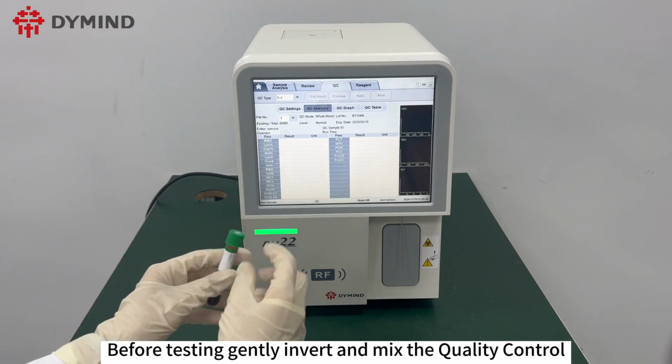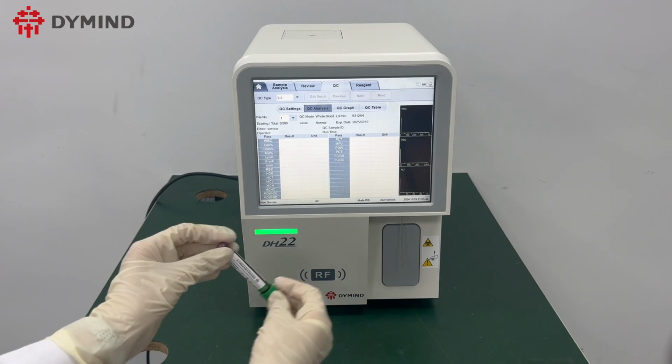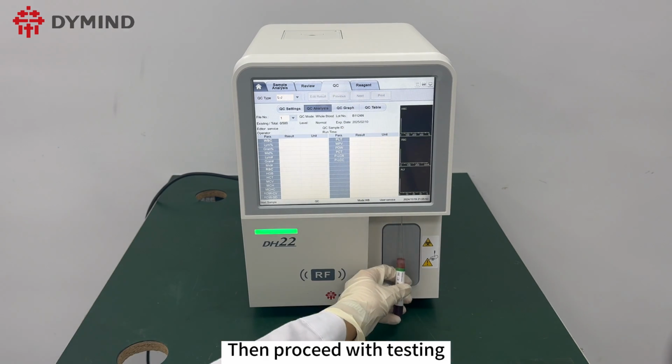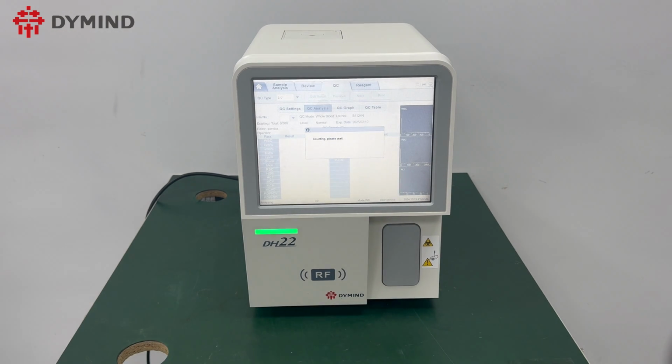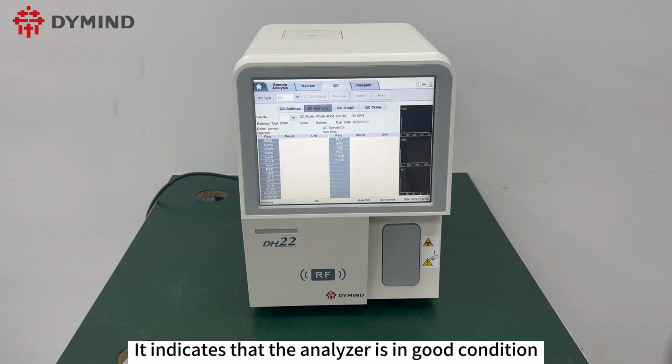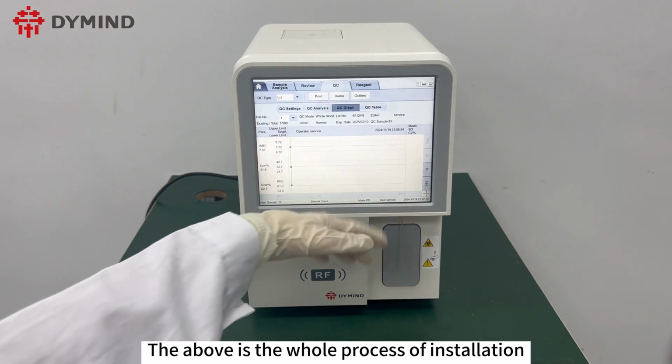Before testing, gently invert and mix the quality control about 10 times. Then proceed with testing. If the quality control results are normal, it indicates that the analyzer is in good condition. The above is the whole process of installation.